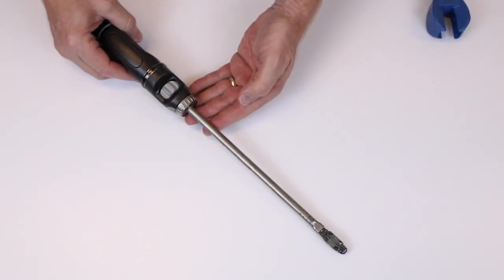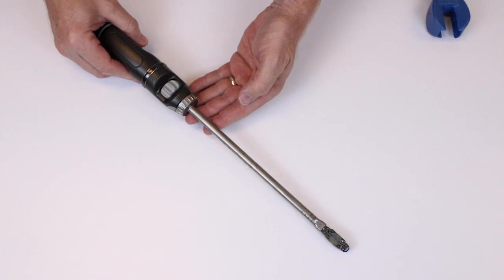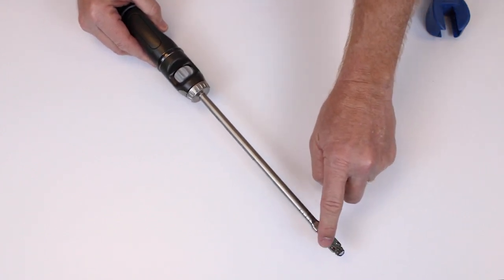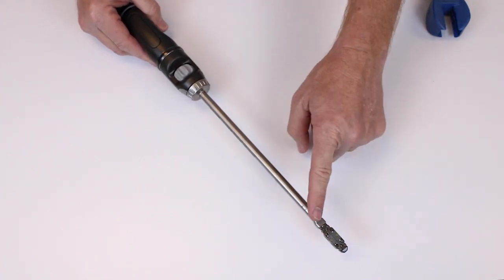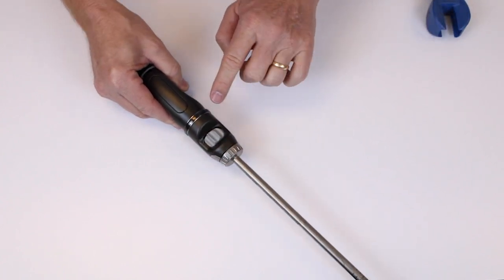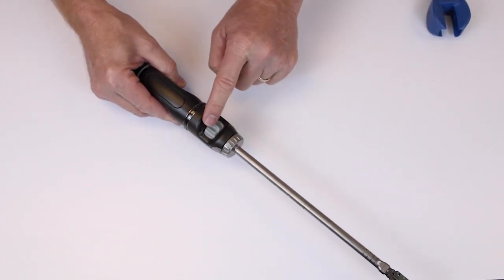Once the implant is selected and loaded onto the handle, it's important to note that the end plates of the implant correspond to the same orientation as the thumb wheel of the handle.